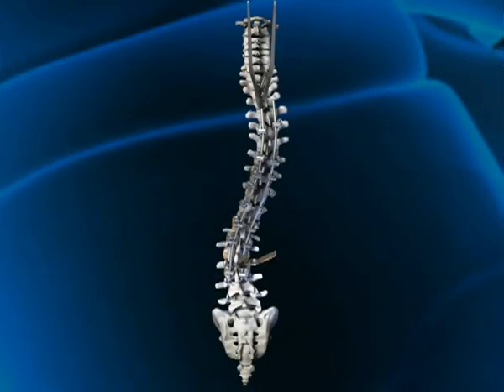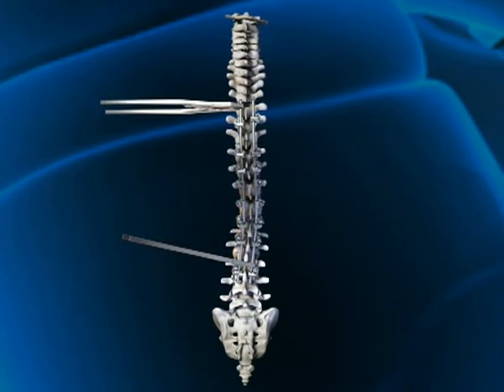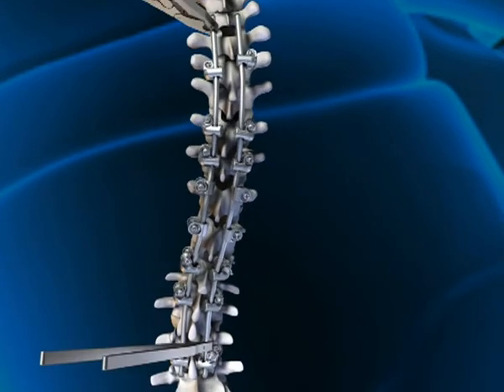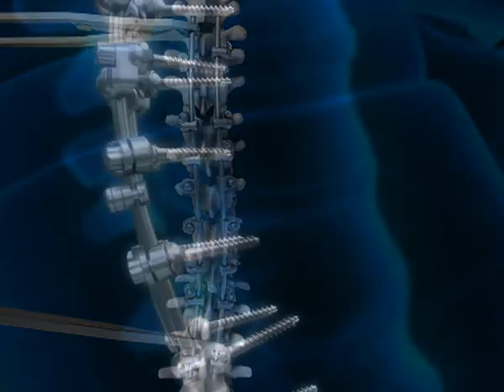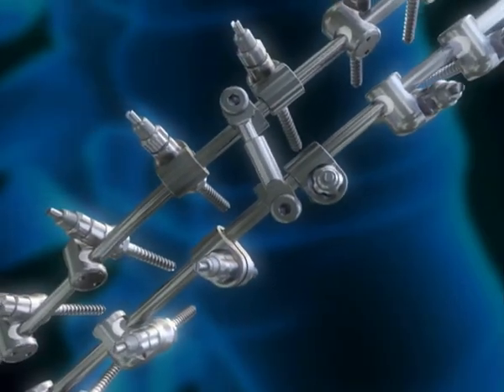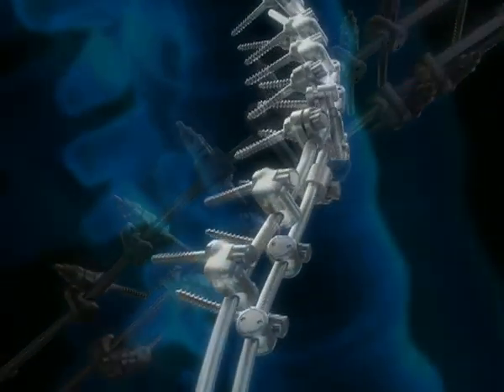Now the rods can be rotated 90 degrees. This straightens the spine in the anterior-posterior plane and forms the sagittal profile according to the contour of the rod. The non-fusion scoliosis correction system.